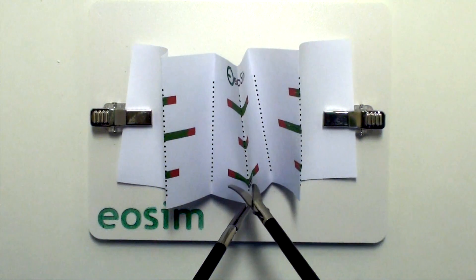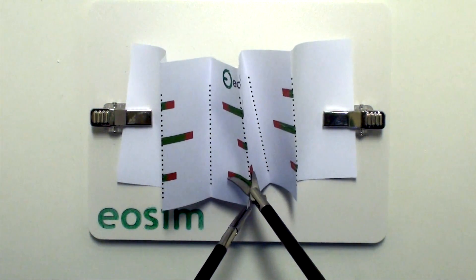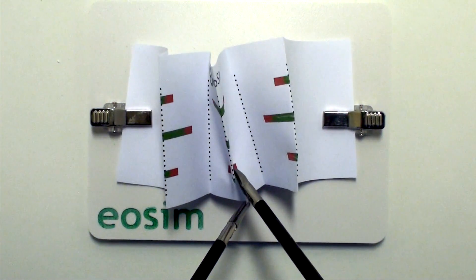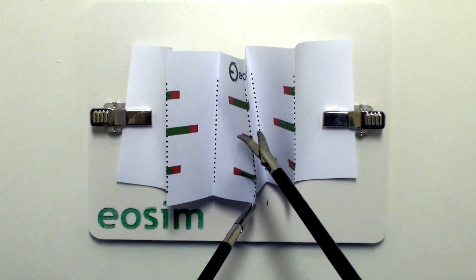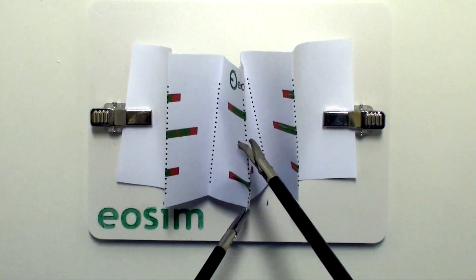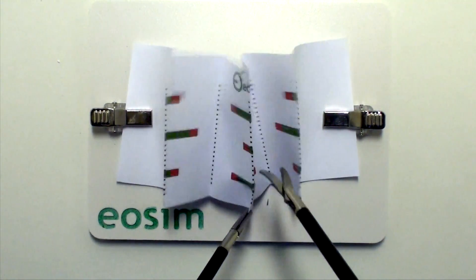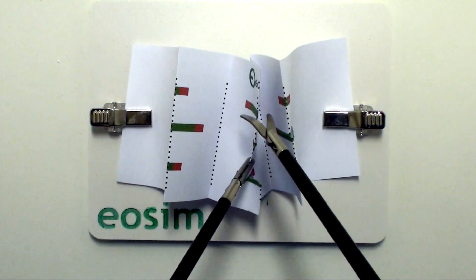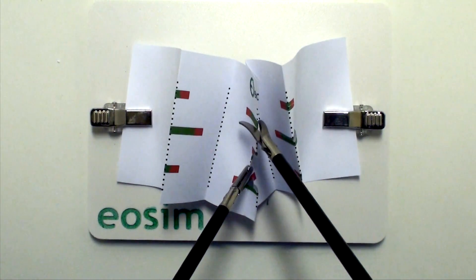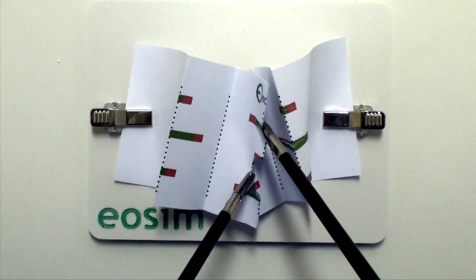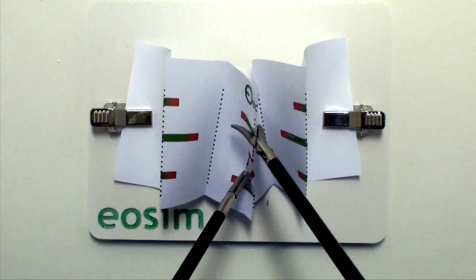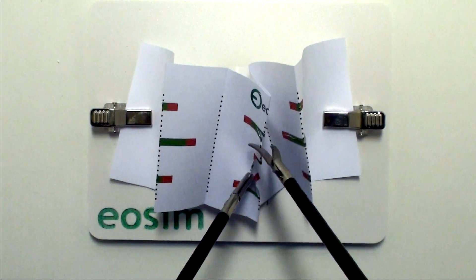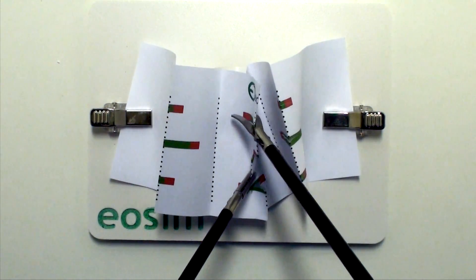One of the tricks to this task is to make sure that you line up properly for the first cut, and that's why it's important to use your left hand to position the paper. For the center here, you can see that it's being pulled slightly towards the user to get the correct angle for the scissors to cut down.